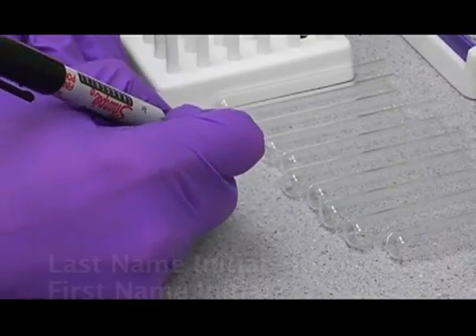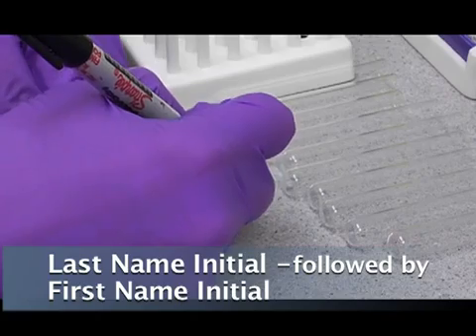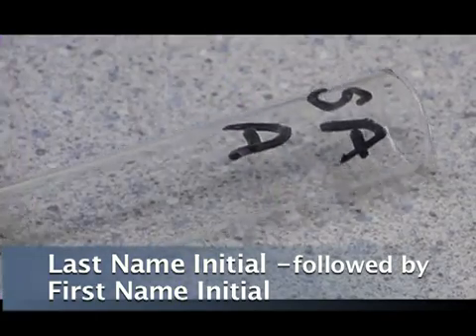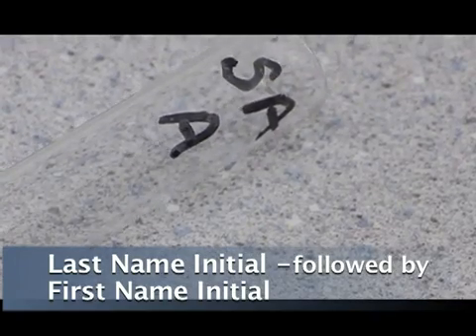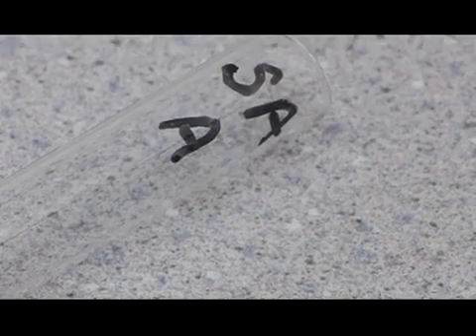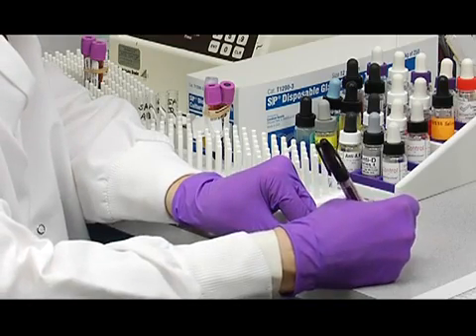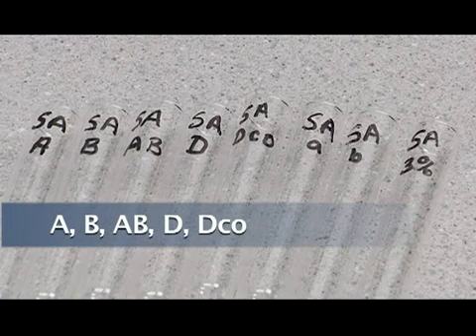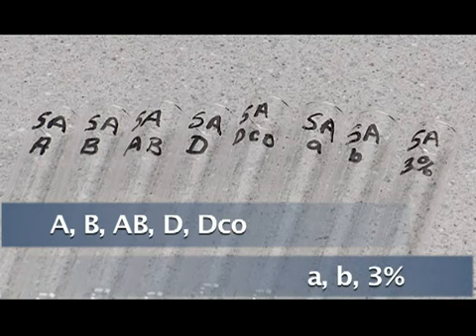So we're going to use the initials for Adam Sandler. And so we're always going to put the first initial last, the last initial of the last name goes first. So we're going to put SA and then a capital A for the forward typing, B, and then one for the AB, D, the D control, and then we're going to put the initials in lowercase for the reverse typing. So lowercase a, lowercase b.